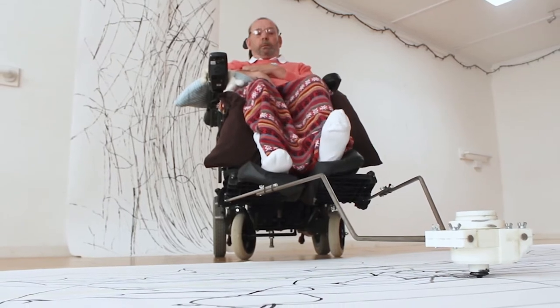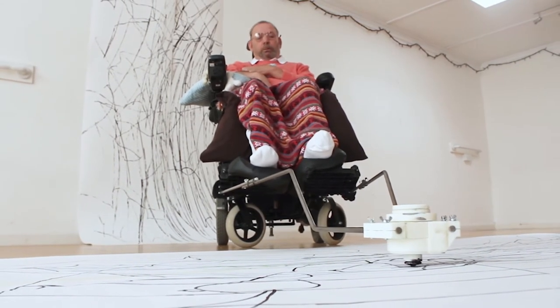We've co-designed it with the people and the professionals who will use it. It all began when we started working with the Sussex MS Centre. We met Barry, paralysed from the neck down, and he wanted to be able to draw again.